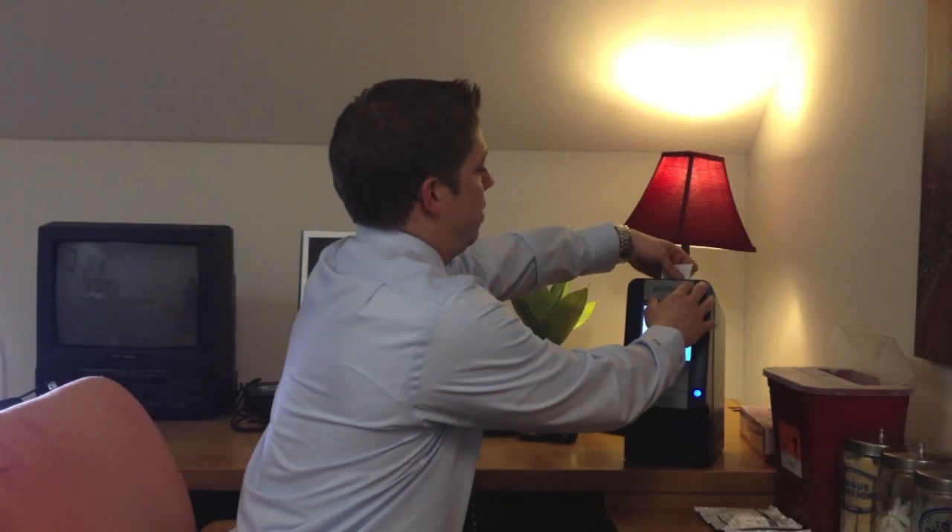And in 12 minutes, we have your results, and it prints off a results sheet for us. We tear it off and we have your results right there. So in 12 minutes, we have some very valuable information.